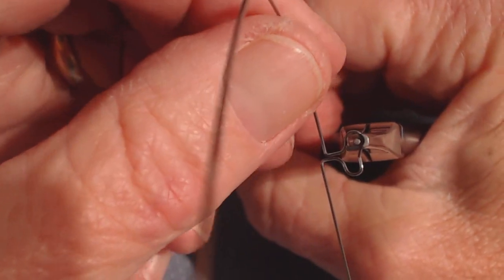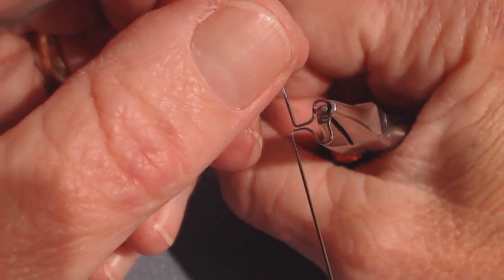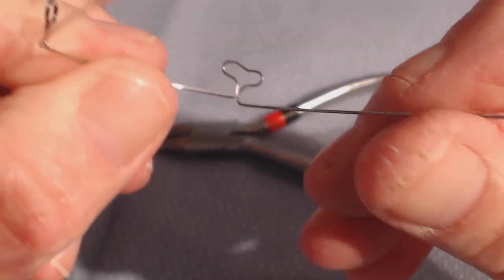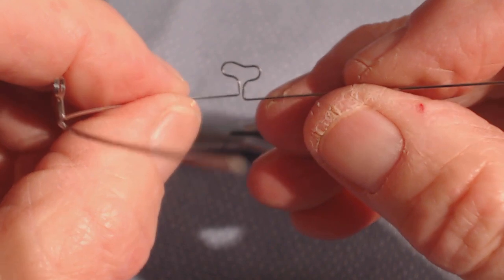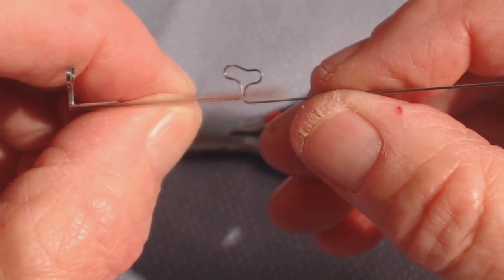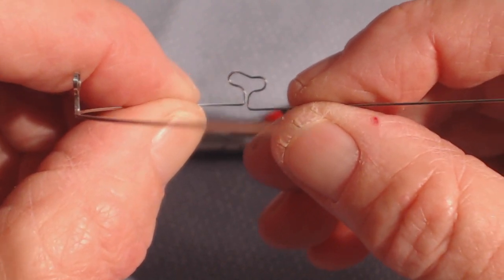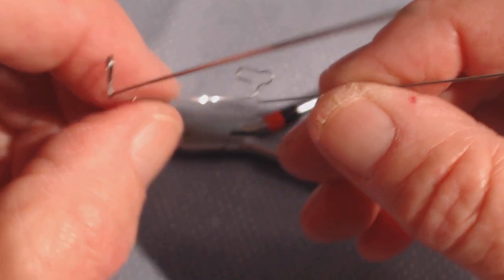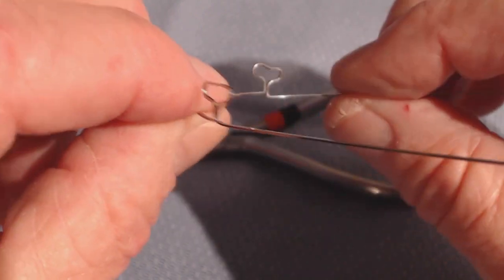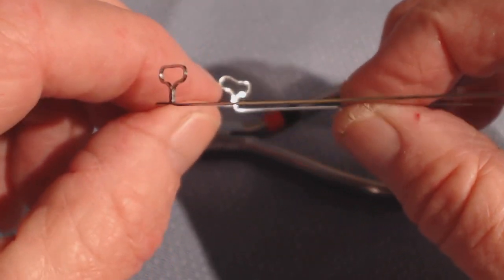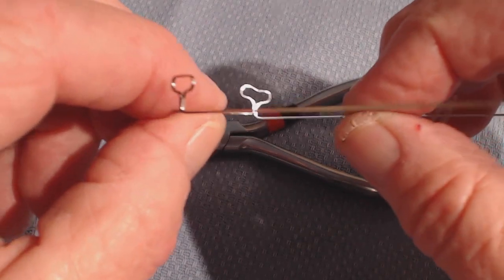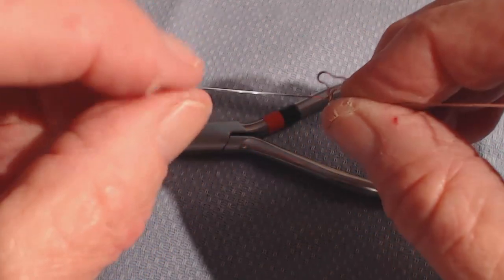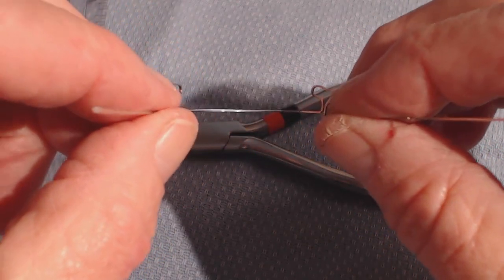You need the legs to be touching one another so that if you're using the loop for a cinch back, it's the right size. The bend can be no bigger than one millimeter—usually three-quarter to one millimeter—or you cannot get it into the bracket slots. Notice the anterior and posterior segments are still flat and parallel. There's no potato chip or torque built into this. It should be dead flat. Repeat this on the contralateral side.